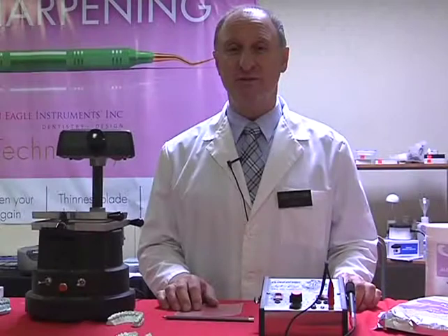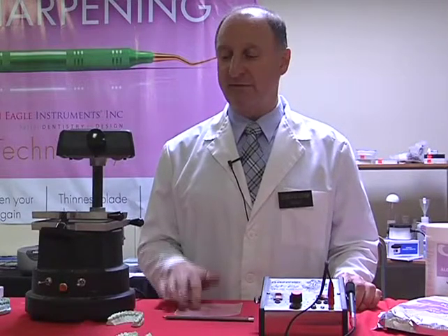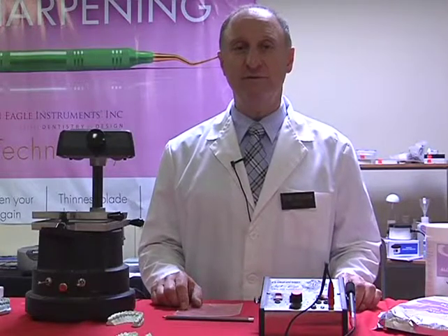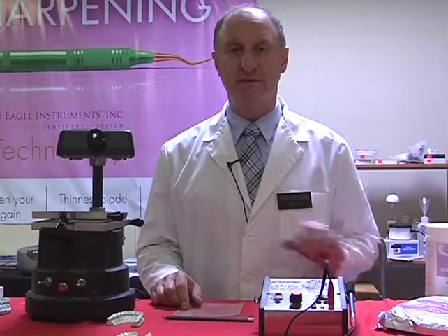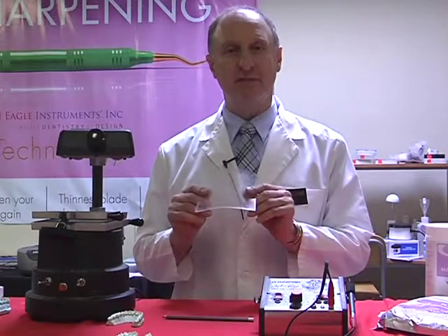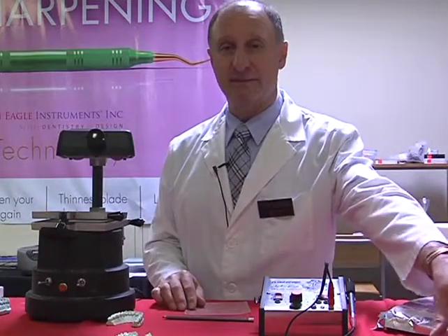And I'd like to talk to you today about making bleaching trays and mouthguards. In front of me I have one of the vacuum form systems. Now there's two forms of, let's say, thermoforming. Thermoforming is where we have sheets of material, which in this case we're having a look at the 040 bleaching tray materials. A variety of other products are out there, such as the mouthguard materials.